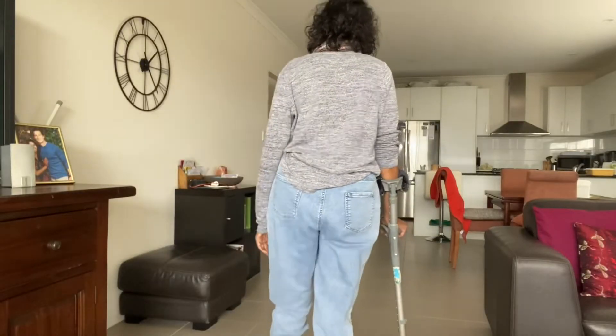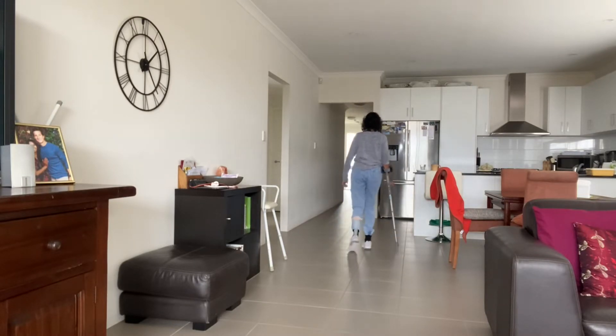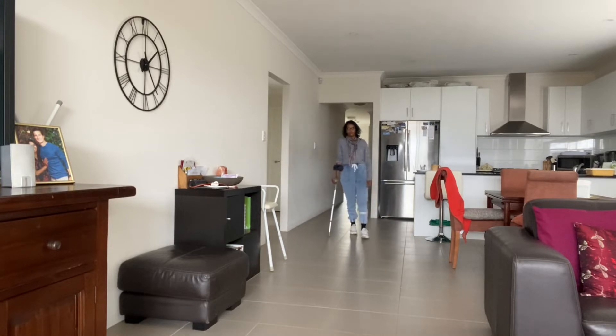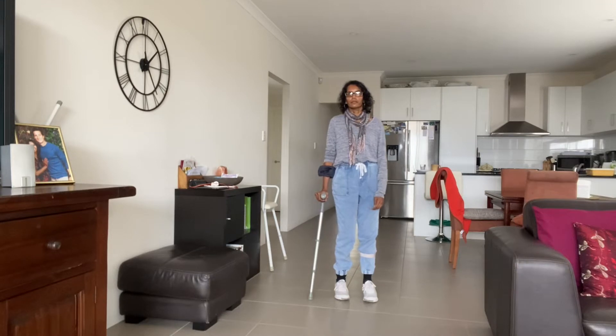And really inconsistent. Next is what I've been practicing, and I am aiming to stand up very straight, look well ahead, and have the stick closer to me so I'm upright and stronger in my core. So this is walking as well as I possibly can — nice and straight and tall and looking well ahead.